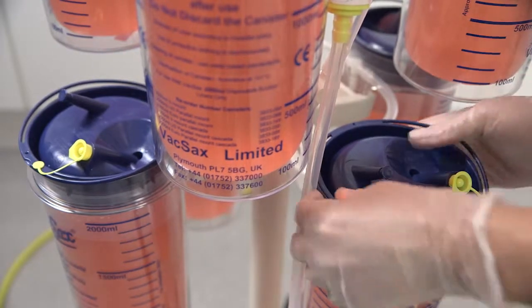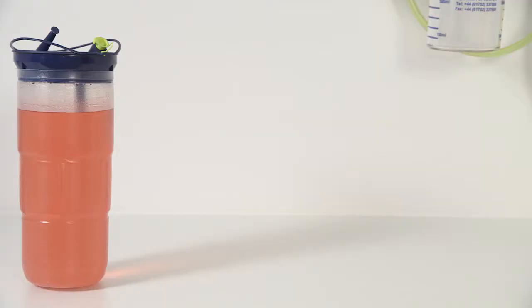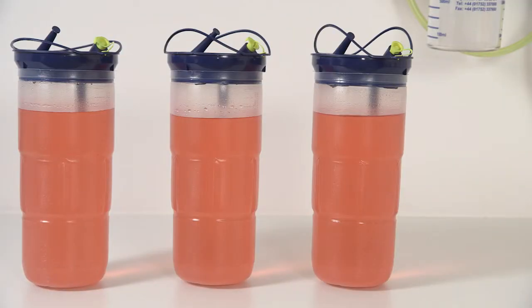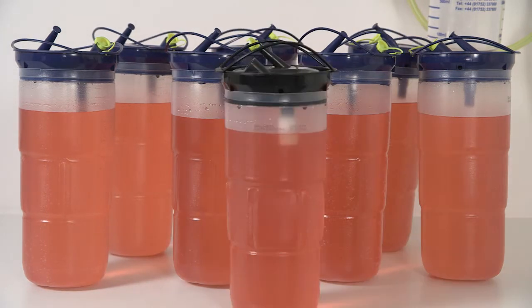Using the convenient handles on each liner, start to remove them from the canisters. The antimicrobial liners stand upright when full of fluid for convenient and safe disposal.